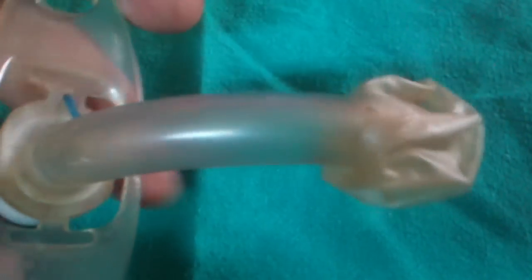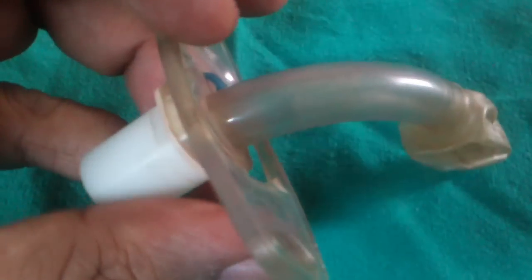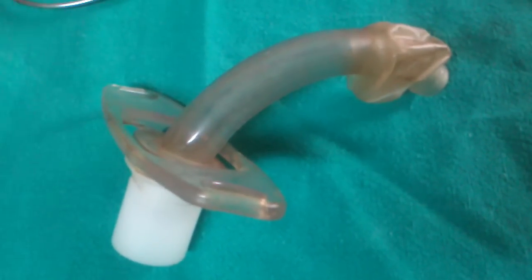And this permits positive pressure ventilation. This is the Portex Tracheostomy tube.